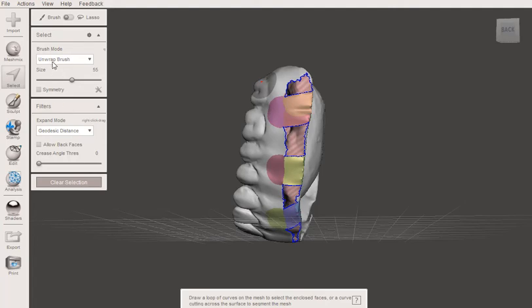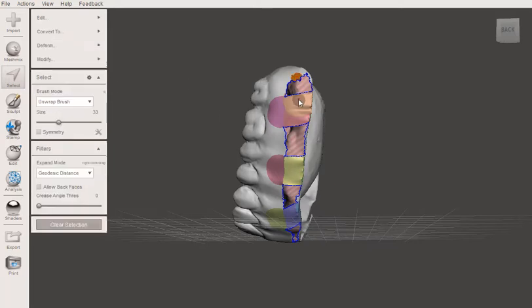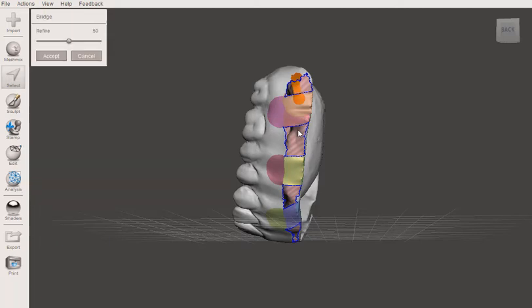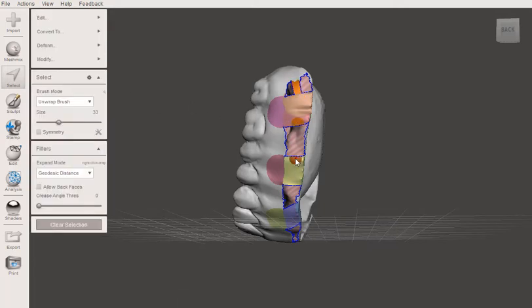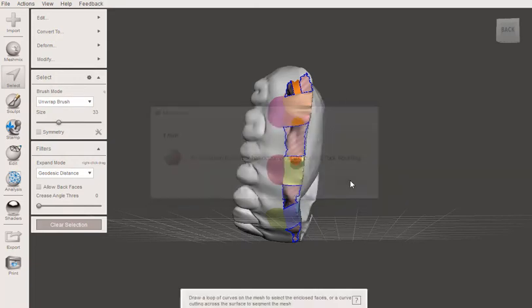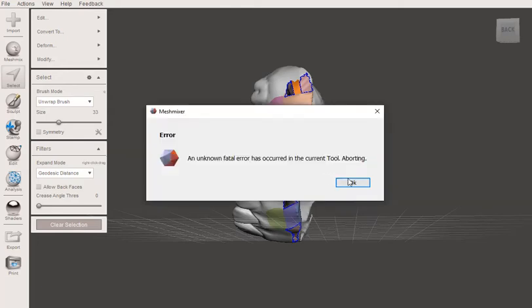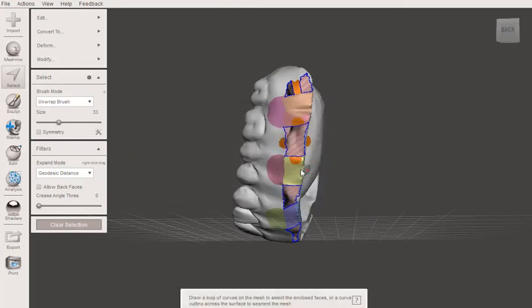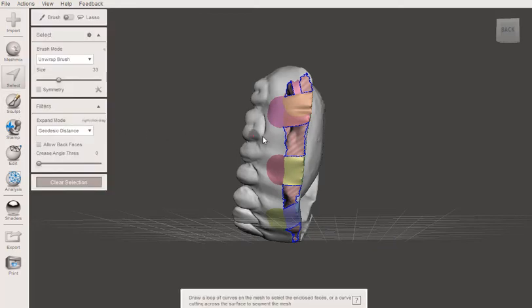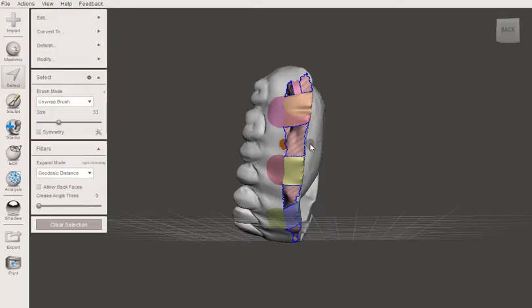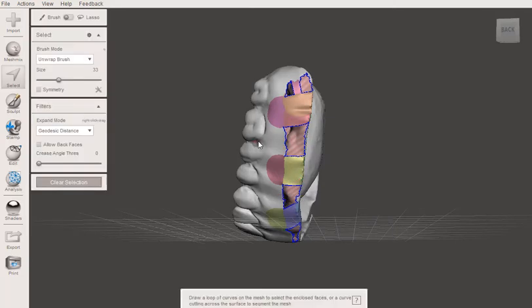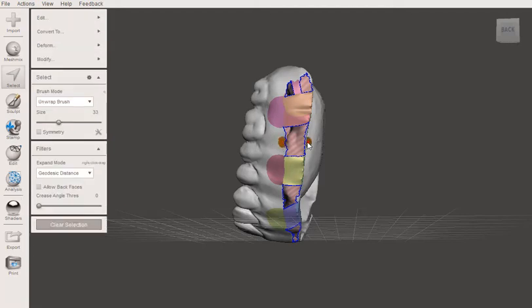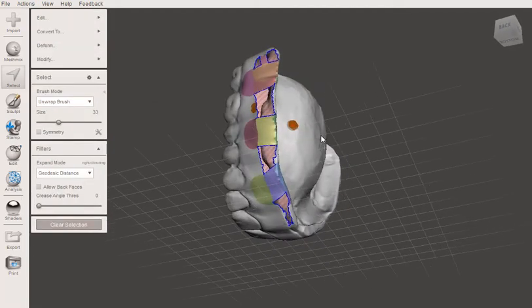All right. Now I'm going to lower the size of this a bit. I can create more bridges if I need to, but I'm just trying to be efficient as possible here. Yeah, that might be too long. Let's do this. I might have to create a little more mini bridges here.